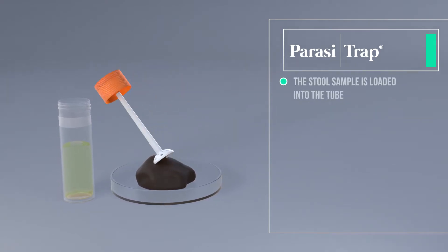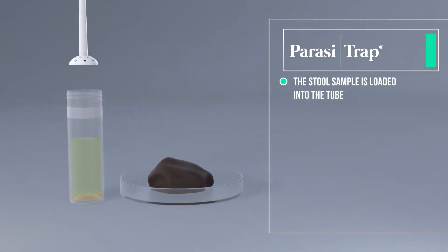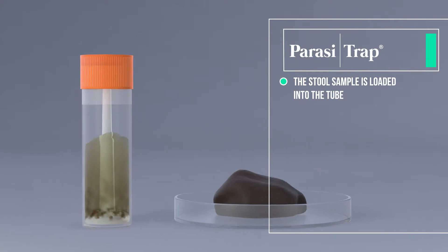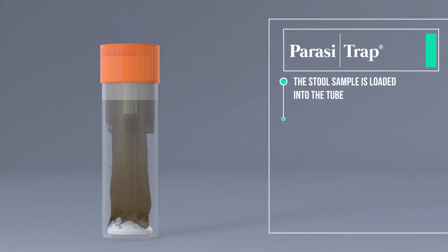Load the stool sample into the tube and shake it several times for optimal distribution of the sample.